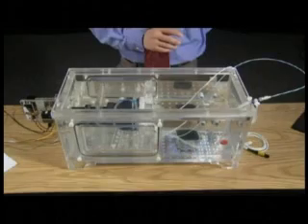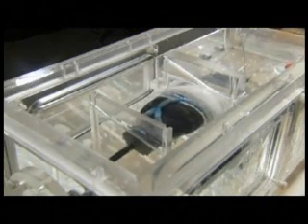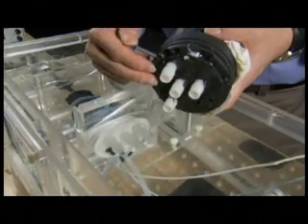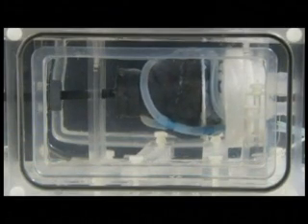In the current model, we use silicon-based tubing for the overlying vessels, and the entire organ phantom is mounted within an acrylic housing. That can be used as a water bath during acoustic testing or for interventional experiments which require device manipulation within a water medium. The acrylic body of the phantom housing is versatile and reconfigurable. It has standardized ports for fluid flow, drainage, and interventional device access. Various acoustic windows are also available for multi-angle ultrasound imaging, as are mounts for additional imaging targets that can be used in characterization of resolution, contrast sensitivity, or localization accuracy of interventional devices.